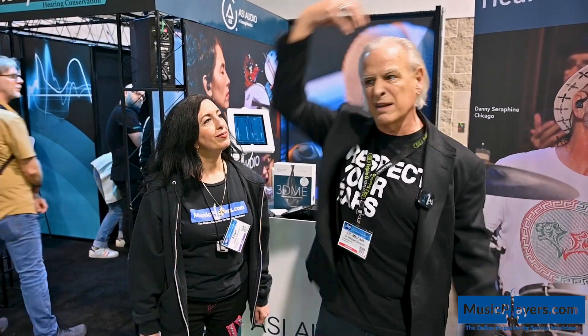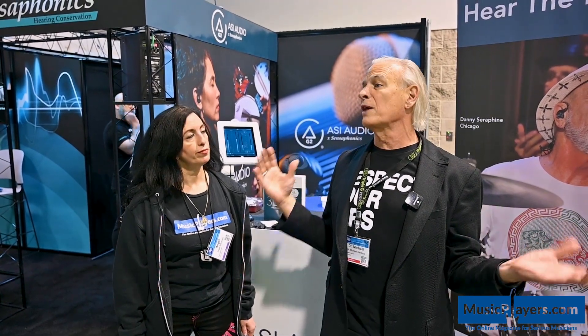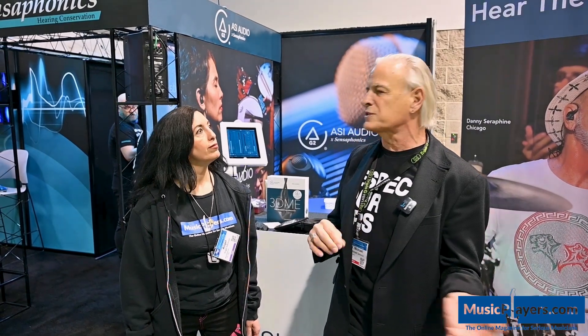And it's because they don't have spatial cues. The drummer used to be localized here, my guitar player here — now they're all here. And even when I turn around, I'm getting some of that back. So the idea is to keep you from pulling one out, keep them in your ears. You have a microphone that you can turn down in 2 dB steps, or if you have hearing loss, you can turn it up. I fit these to orchestra players, pit orchestras, and the New York Metropolitan Opera Orchestra — 50 of them as earplugs, tunable. So it's a tunable earplug and ear monitor in one piece to keep your hearing intact.